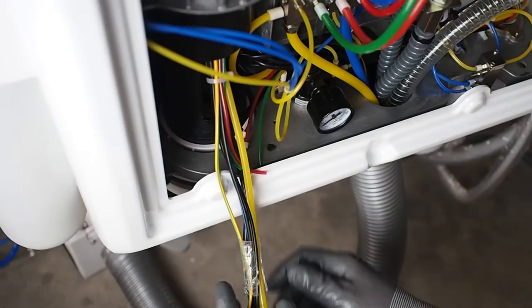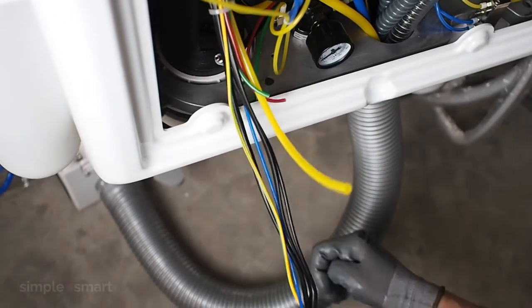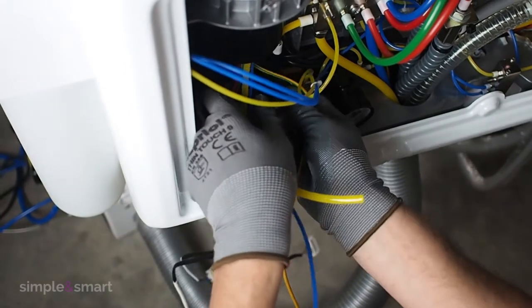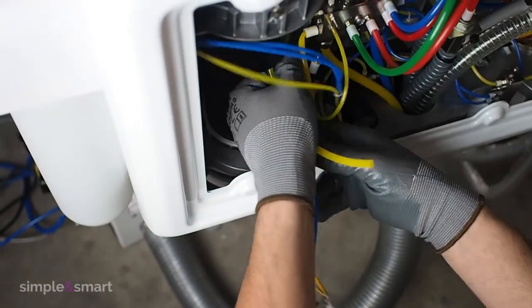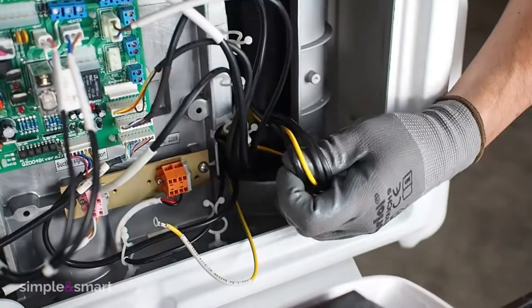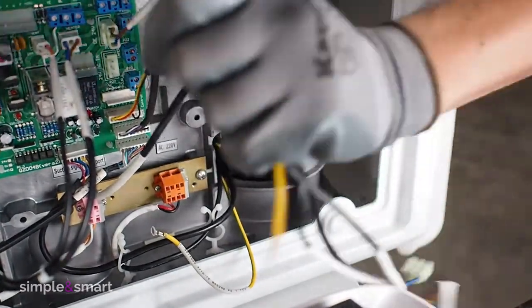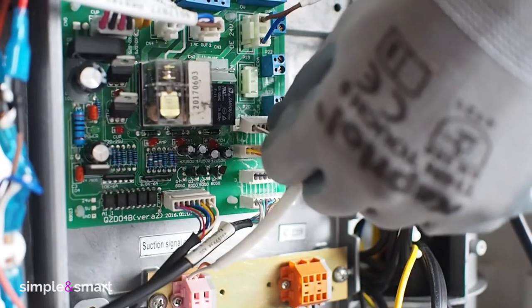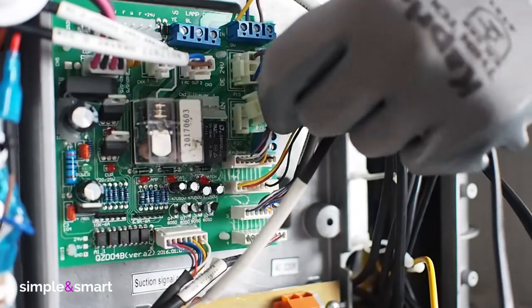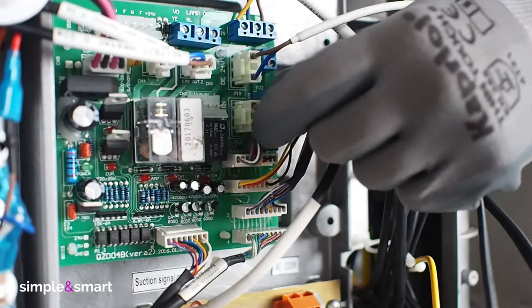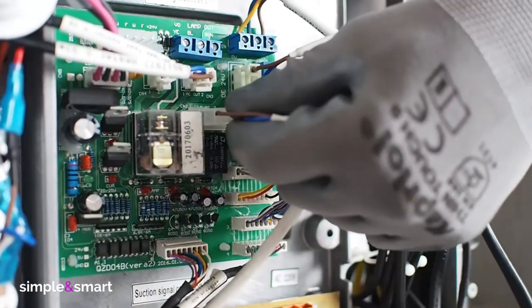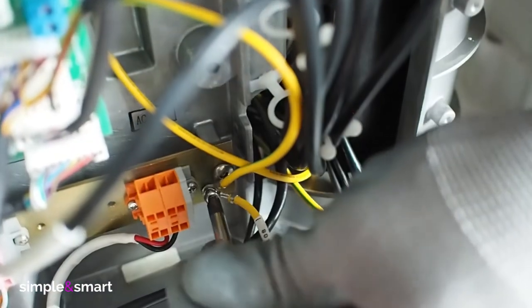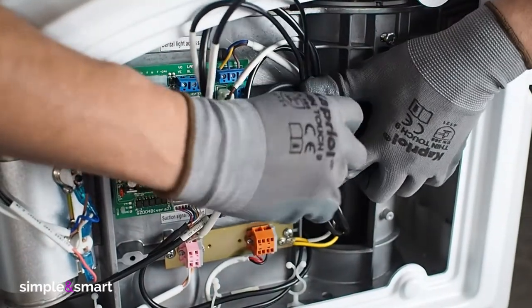Now it's time to reconnect the tubes and wires of the instrument tray inside the water unit. Bring the wires on their side. Reconnect the fast connectors.